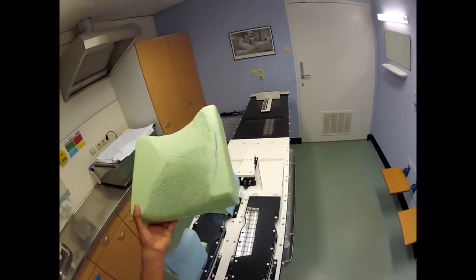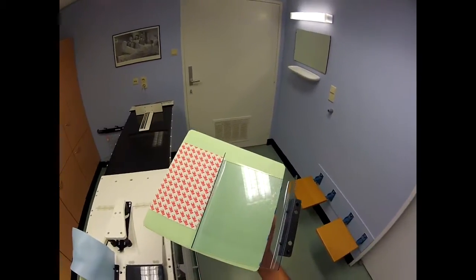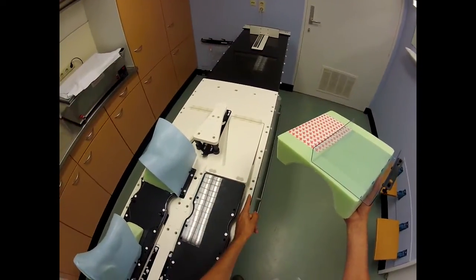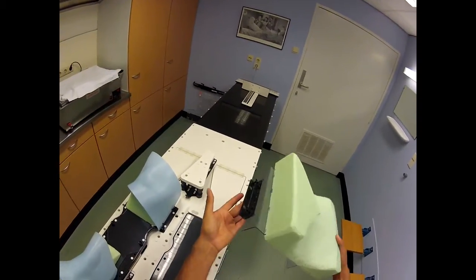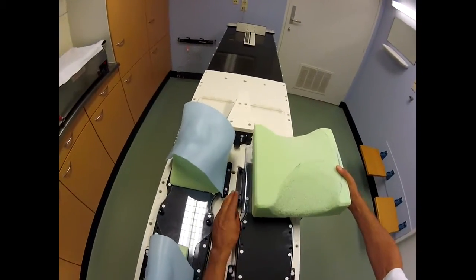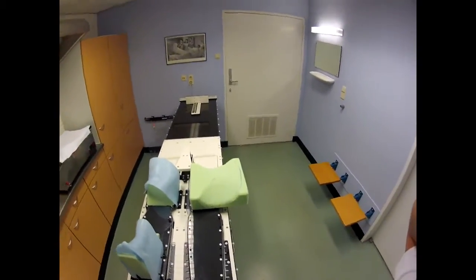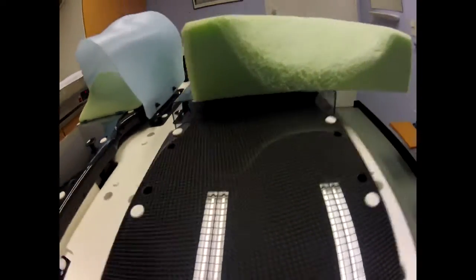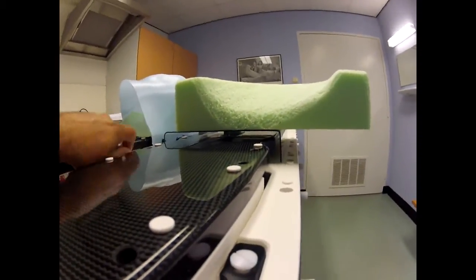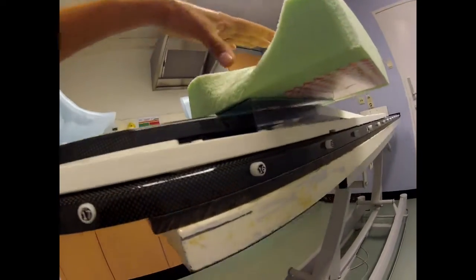I tried something and came up with this: polystyrene. I made something out of acrylic — a little bridge that stands over here. I put an L-profile on it, and it looks like this. You can see it better with the head camera — it's like a bridge over the leg support, just resting on the Lex Ultra.